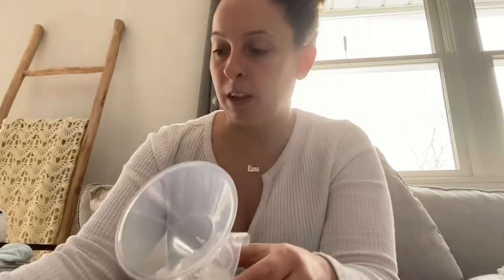The milk goes into the duckbill, which you attach underneath on this hole, and it opens and closes into the bottle. This is the Amazon version of the Spectra bottle. I also wanted to mention — this piece is to close the bottle, it just goes on top like that and then you're closed. The tops work for both bottles, and the seal is a rubbery piece which you can boil and wash by hand with the bottle brush. I usually just label the front and the measurements are in the back.